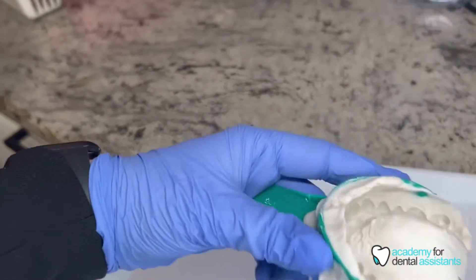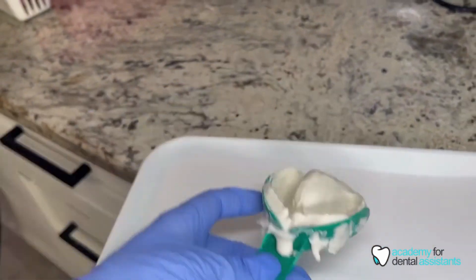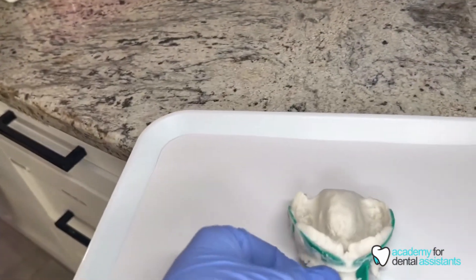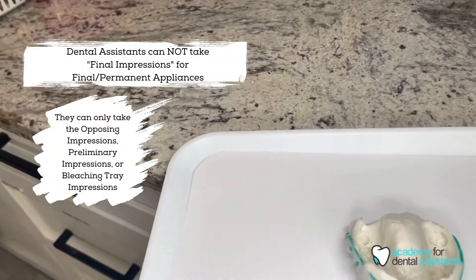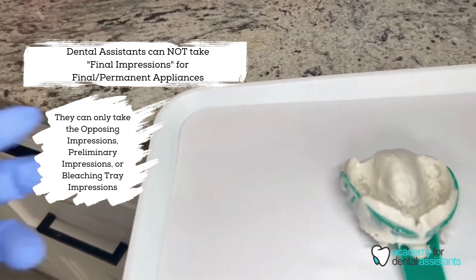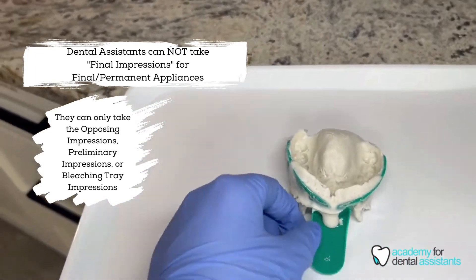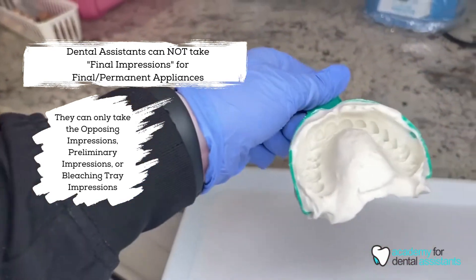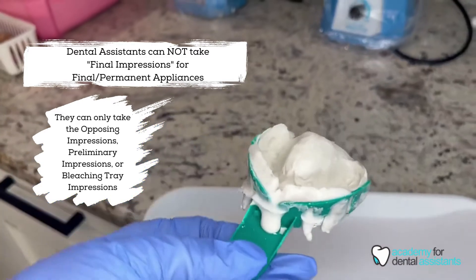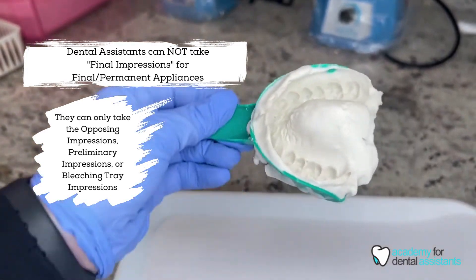Also, as you know, dental assistants are not able to take impressions for anything permanent. However, we can take the preliminary impression and give them a good idea of what it will look like.